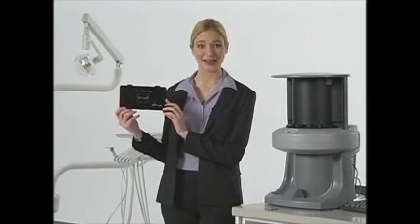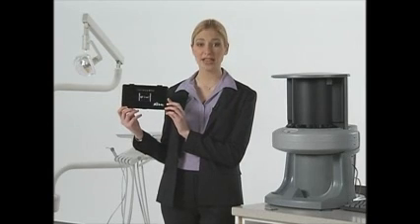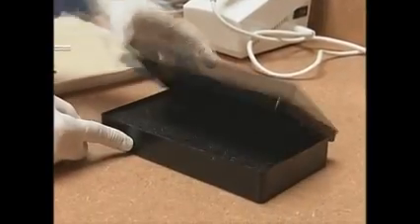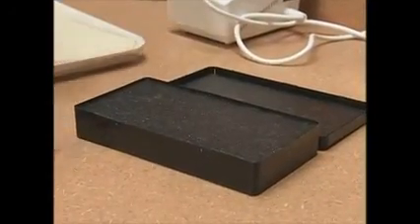This is called the transfer box. It's where you keep your exposed plates until you're ready to scan them. The box protects the plates from light, which can reduce the quality of the image. Before exposing the plates, it's important to open the transfer box with the lid facing away from you. We do this to prevent cross-contamination later.